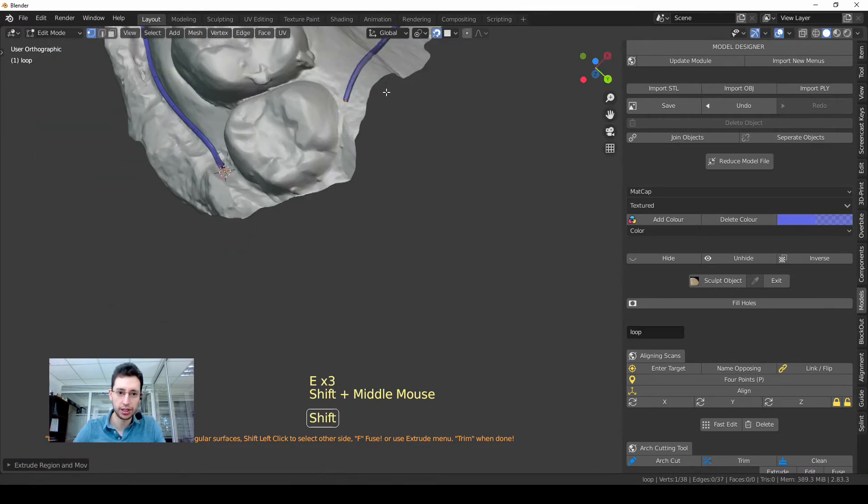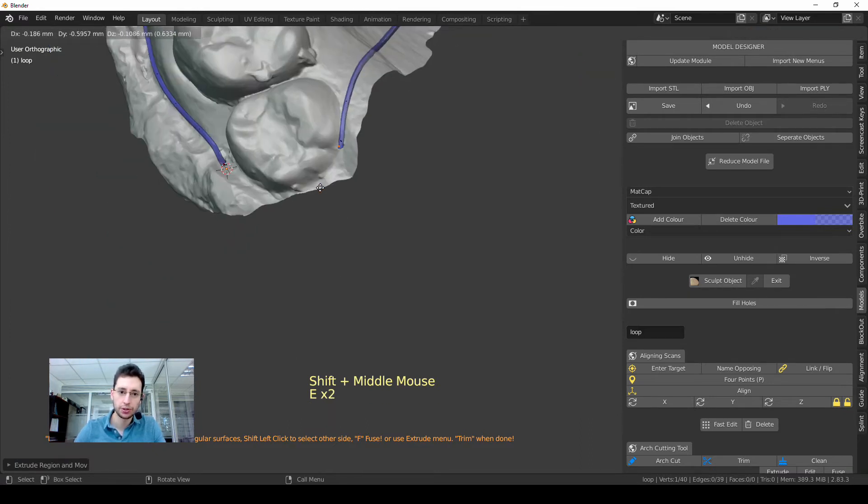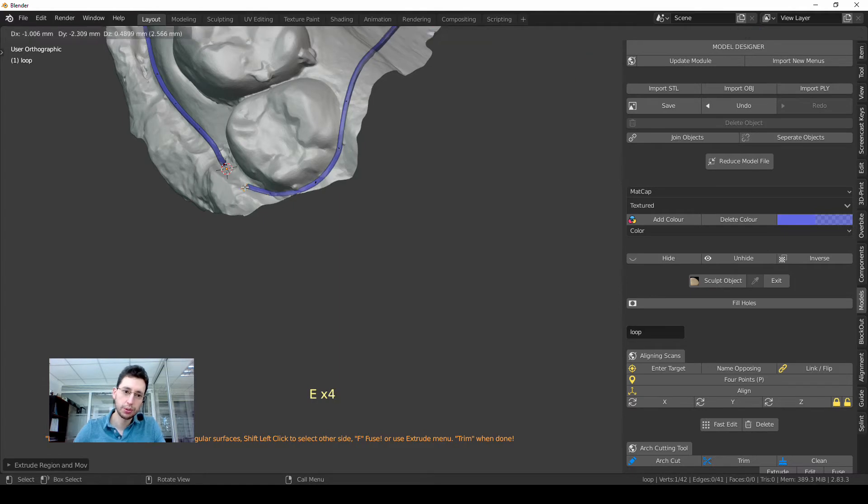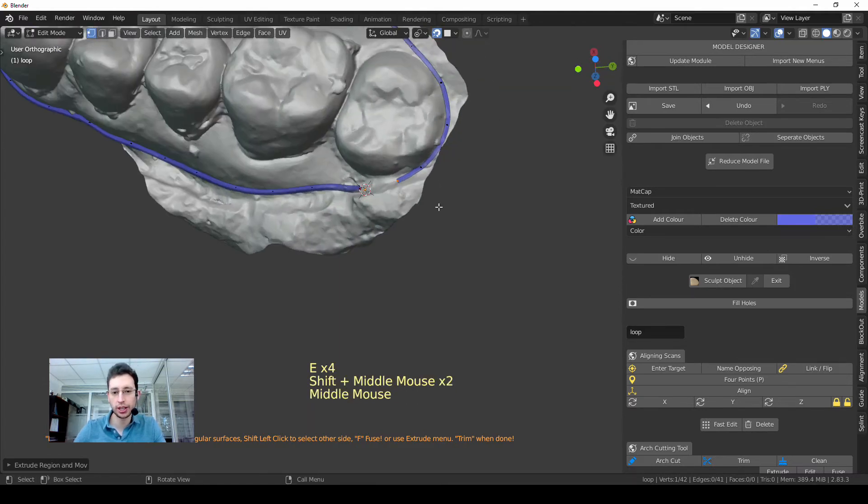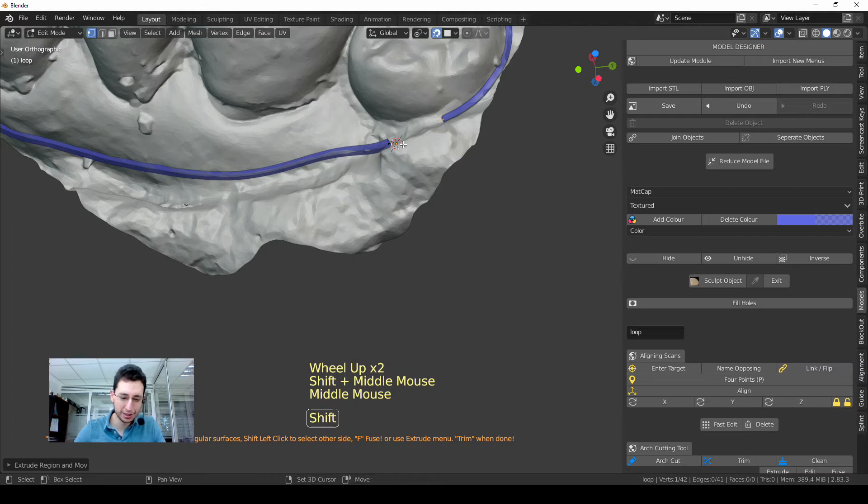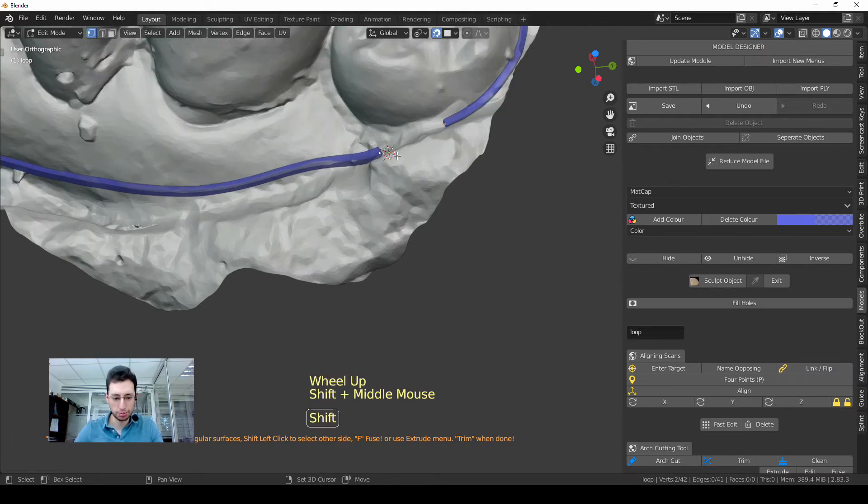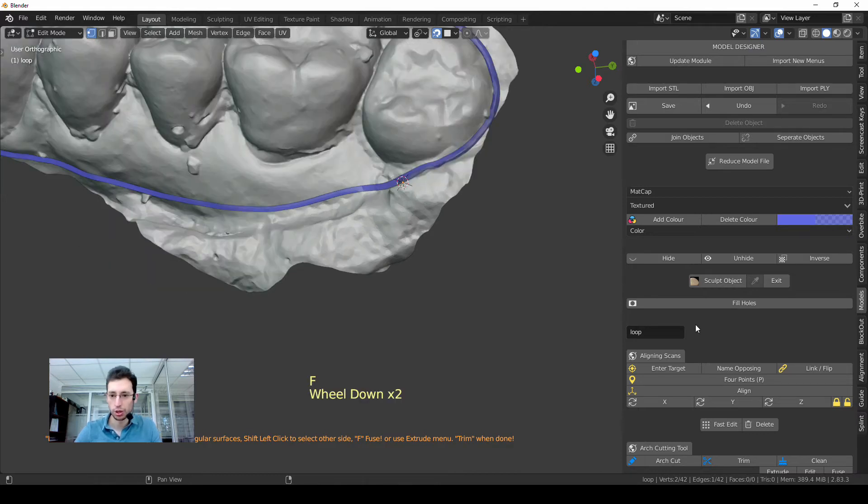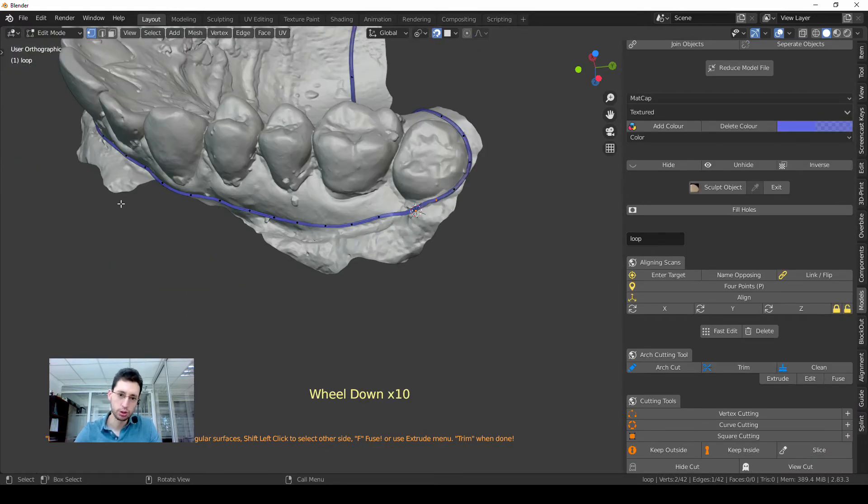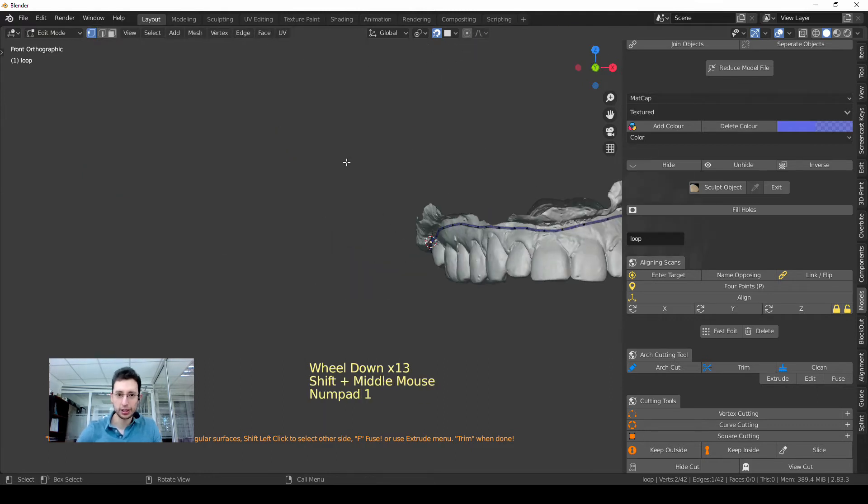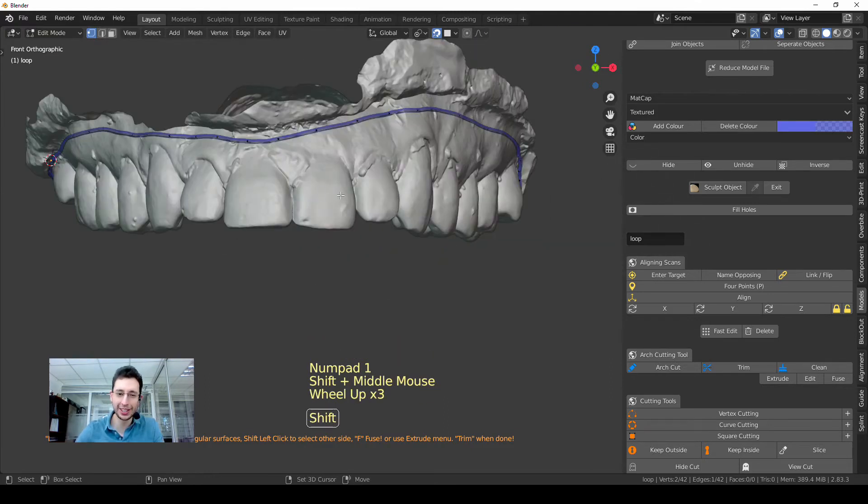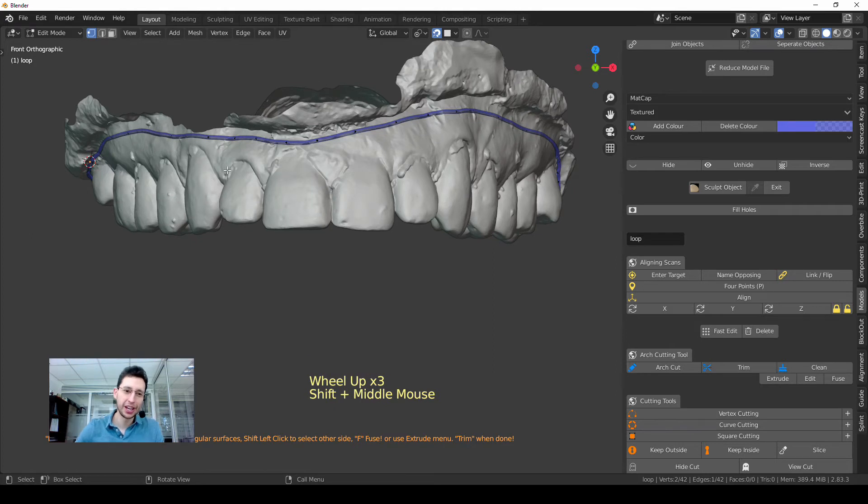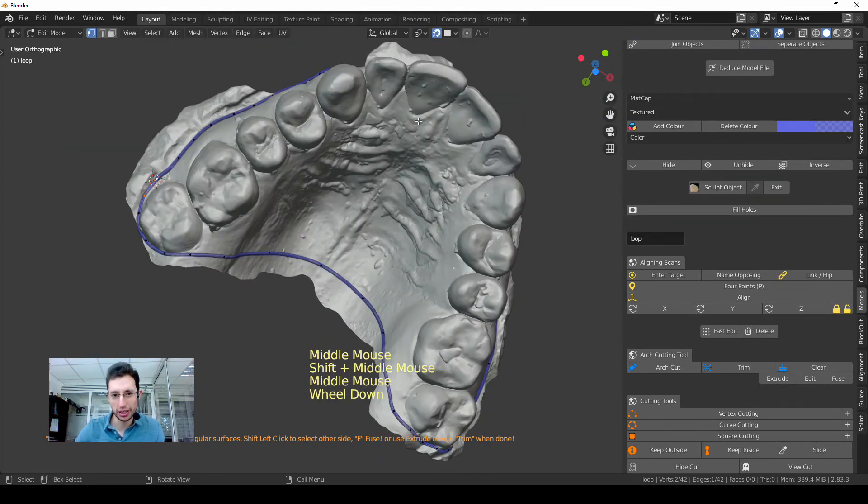Okay, so I keep going. It's very easy, just pressing the key E for extruding. I keep going, and when I get to the last piece, last small tube, I just press Shift and pick the first vertex and then press the key F to fuse. You can also use here Extrude and Fuse to do the same thing, but since this is a short tutorial I will not cover in depth. It's very easy actually.